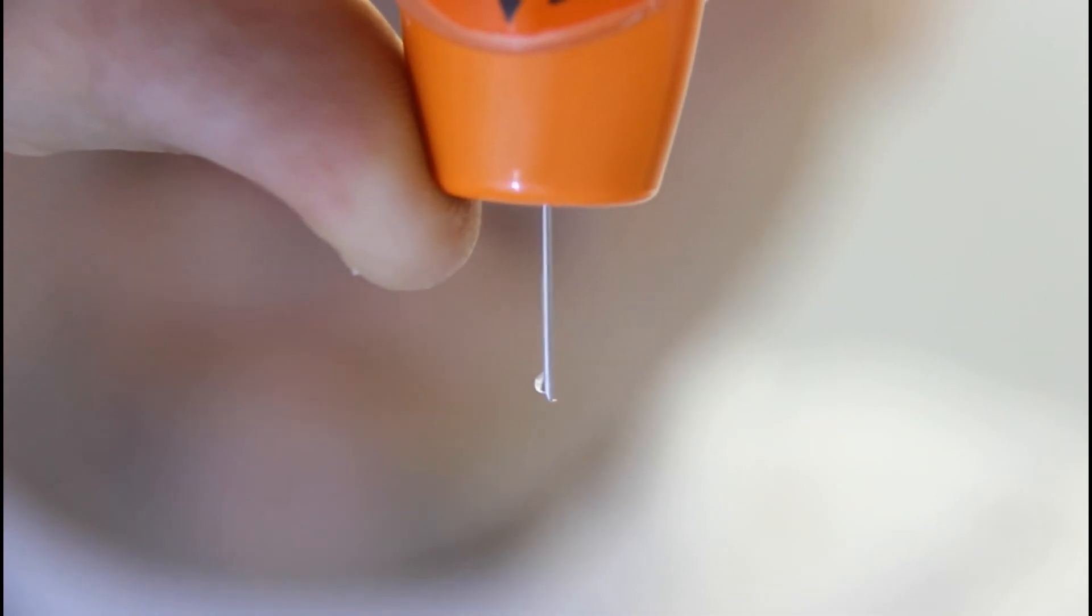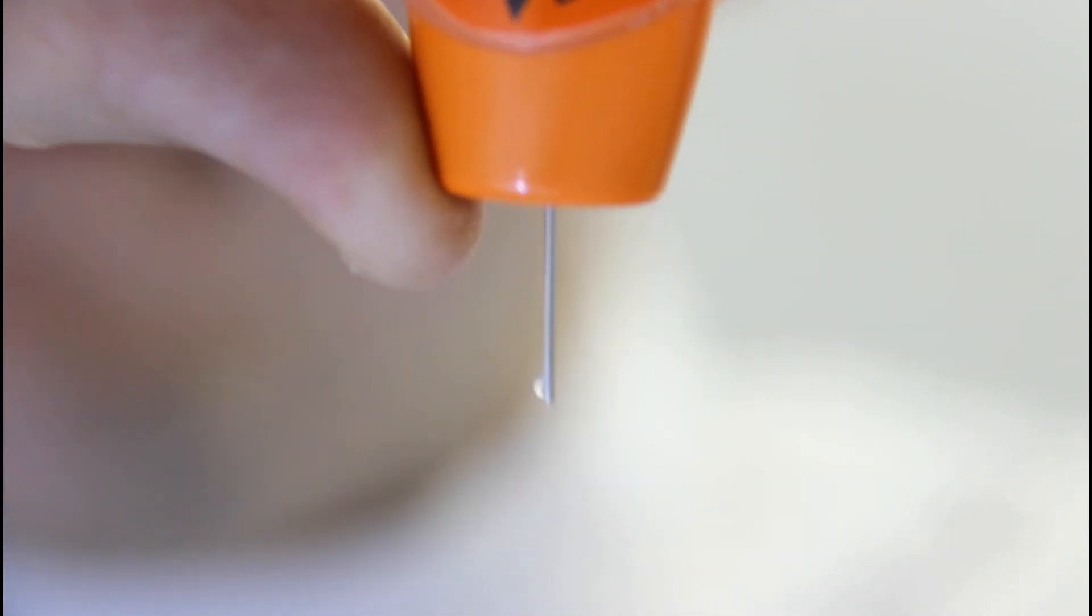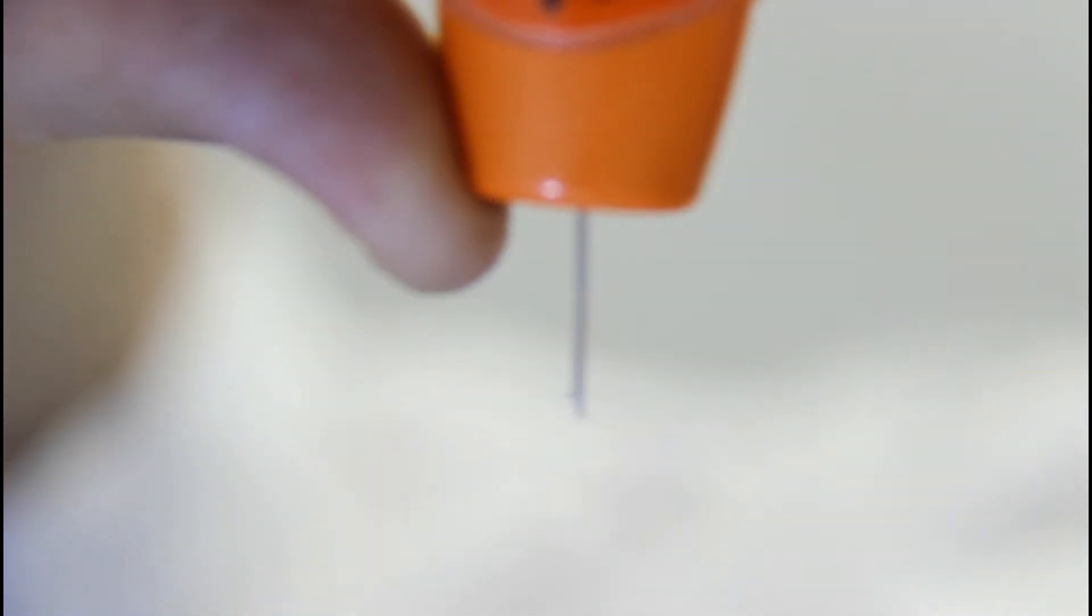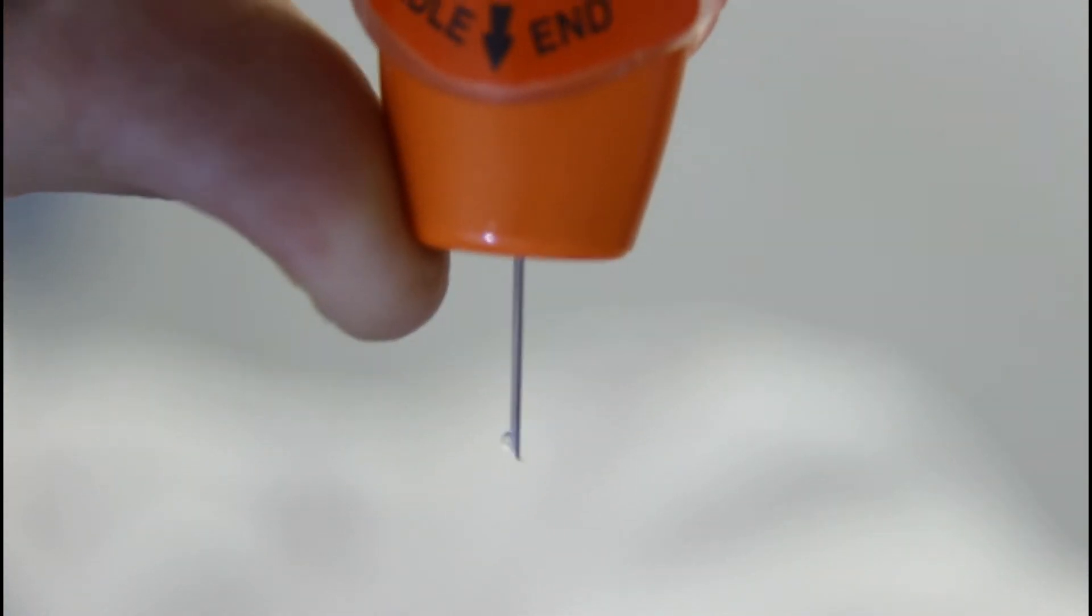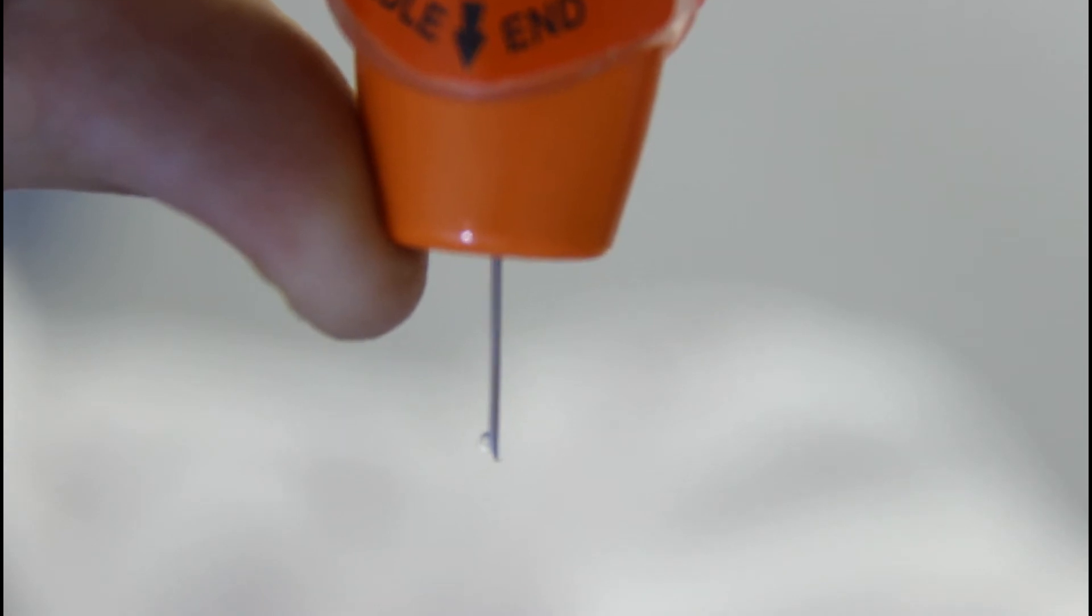So I've just held the safety protector back so you can see the length of the needle. It's about two, two and a half centimeters which is designed to get all the way into the muscle, which brings me to my counseling point.